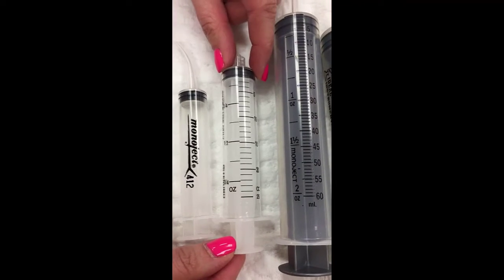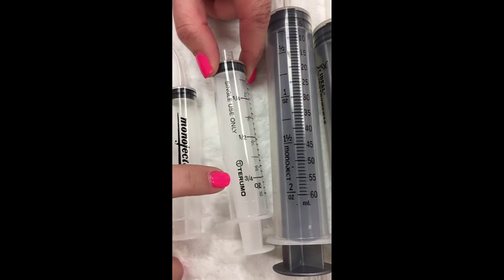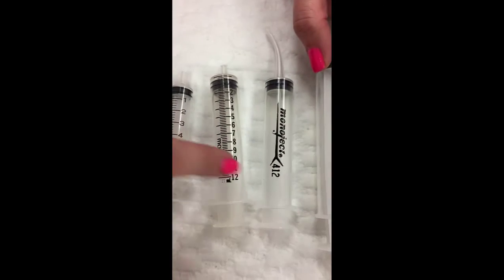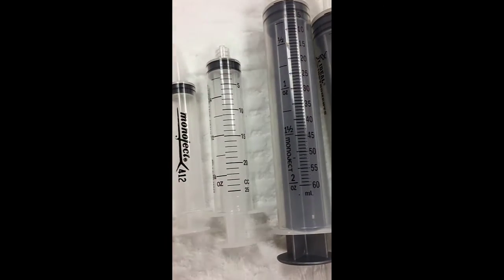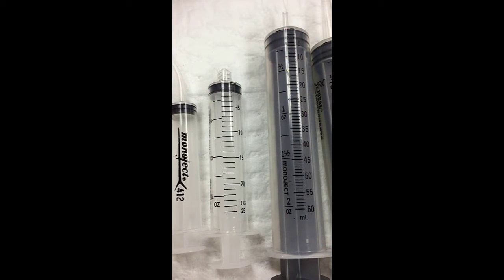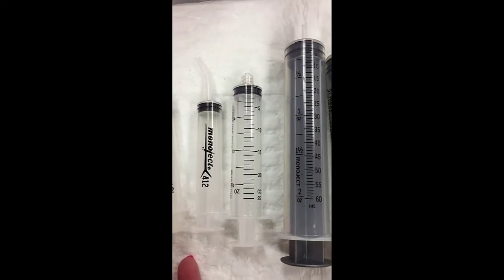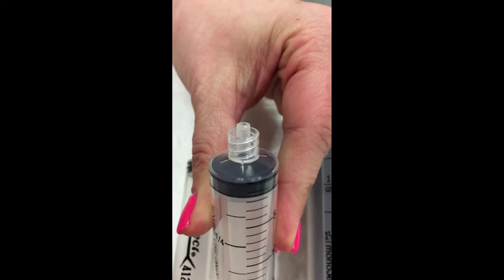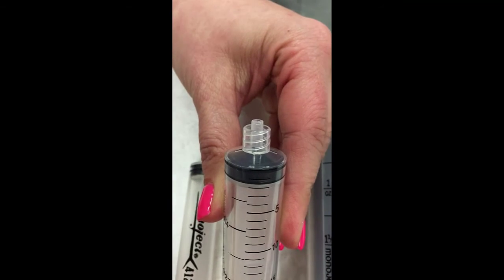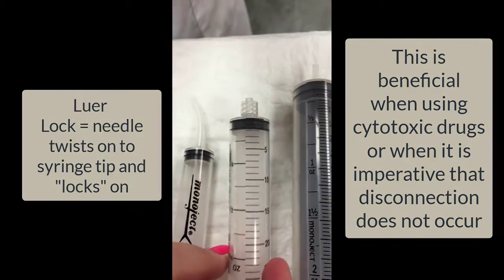Here we have a 25 mil syringe. And you can see that it's a different brand. These ones have been Monoject, and this one is a Terumo. So depending on the type of brand that you use at your clinic, it will vary depending on which clinic you work at, but the general volumes and sizes of syringes stay the same between companies. This one here, you can see, has what's called a Luer lock. So it actually has an end for a needle that you can twist on.